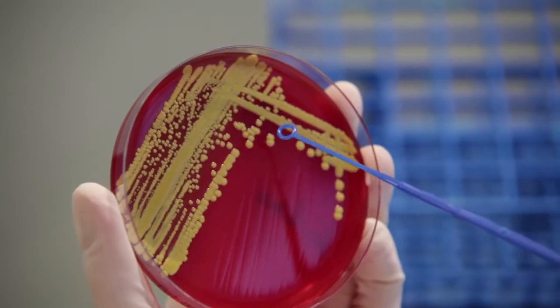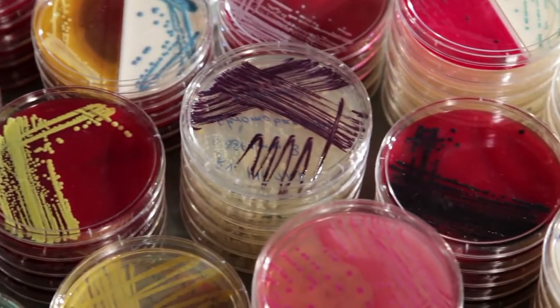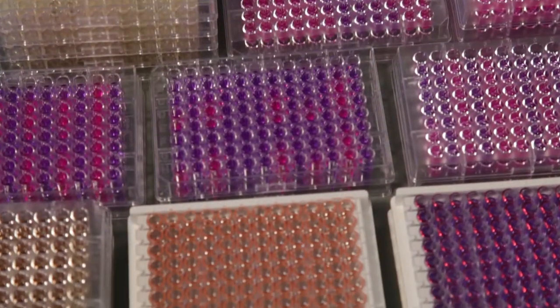These in vitro diagnostics are used in routine laboratories in the fields of human medicine as well as in veterinary medicine.